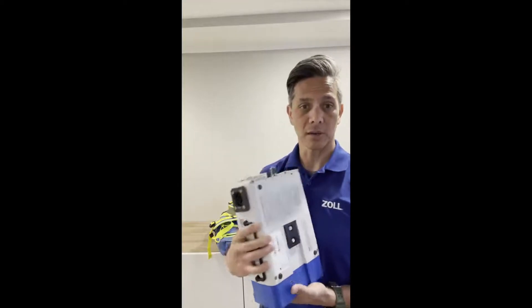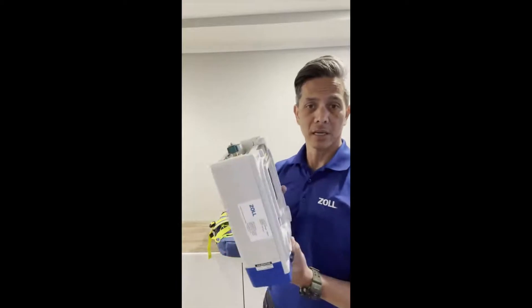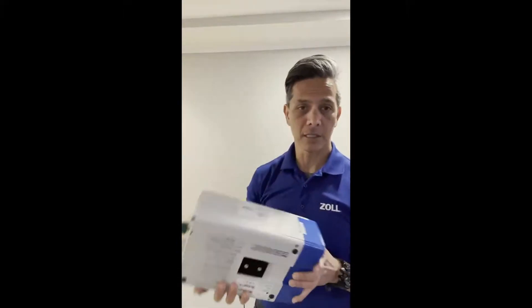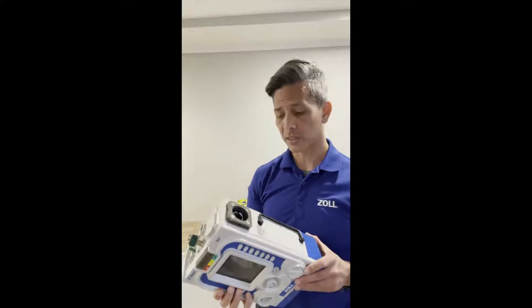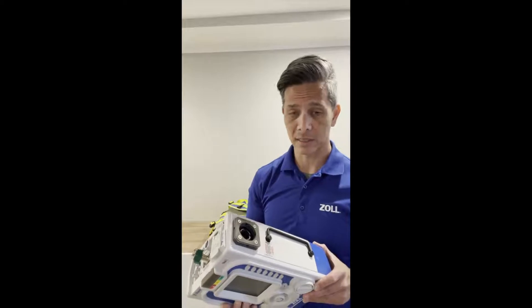On the back there's a way to mount it in the back of your truck — you just find some wall real estate, and it's a plate about this big. You slide it on and slide it off. It's rated for 20g, so it's pretty durable. There's a lot more military specs I won't get into today, but there's ingress protection, drop protection — it can get rained on, snowed on, stood on. All of that obviously relates to the EMS market.